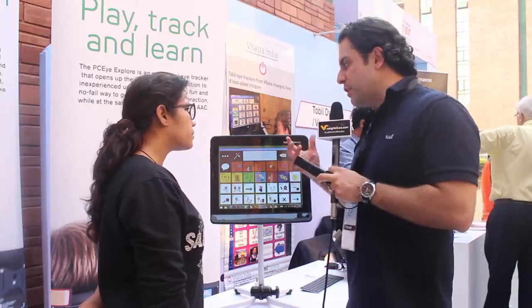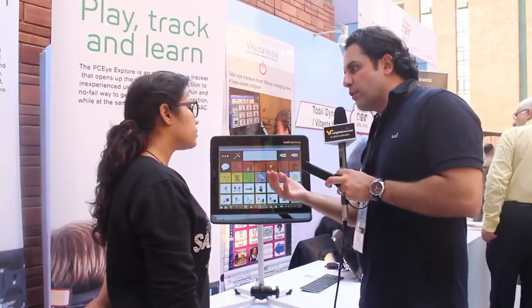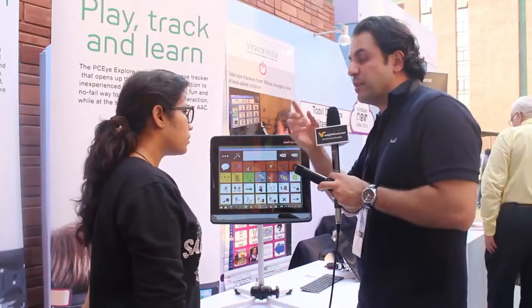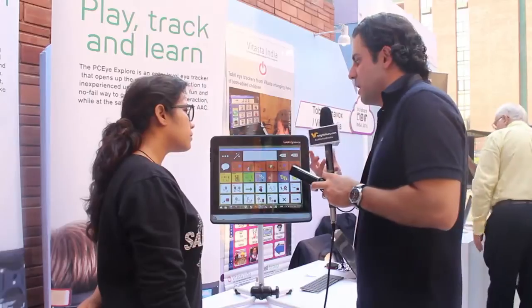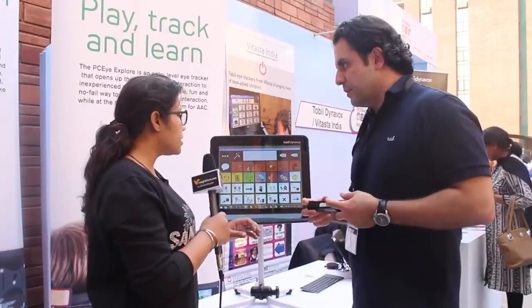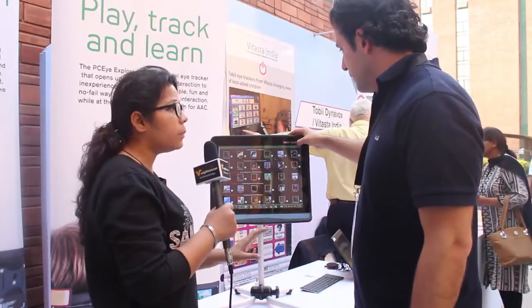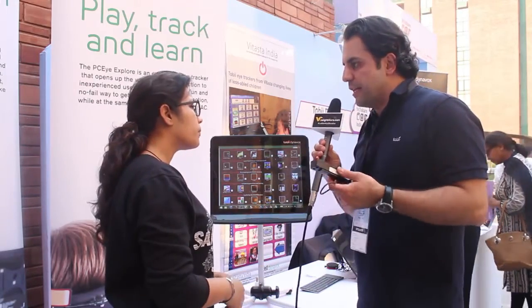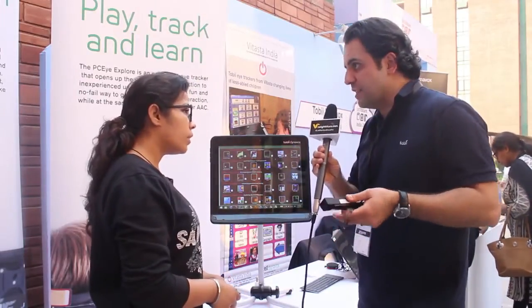So the range of people that use eye control or eye interaction is anything from 12-month-old babies with severe disabilities, where the parents want them to learn how to point with their eyes, up to adults with an acquired disability who just need an alternative way to access a computer. So this is an application which can be used by any person, right? Yeah, we are not discriminating in terms of age. The only need is that either you don't have hand movement, or you don't have any hand movement nor speech. These are the kind of user groups.